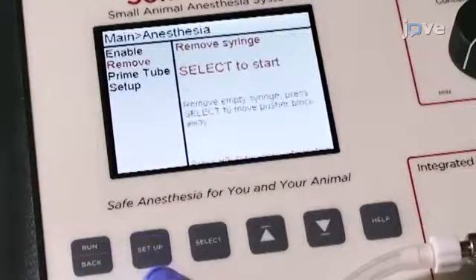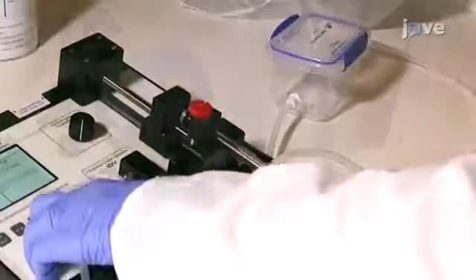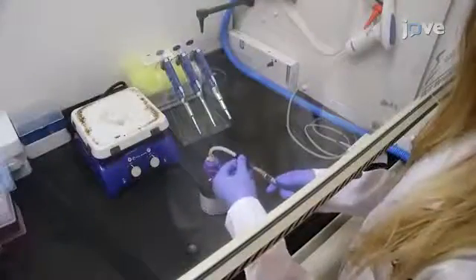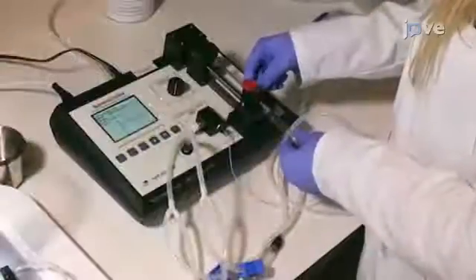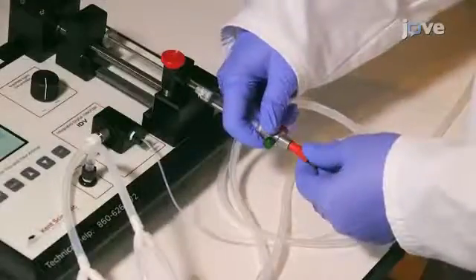Remove the syringe and then fill with isoflurane using the bottle top adapter. After filling, place the syringe back into the retention block and attach the delivery tube.